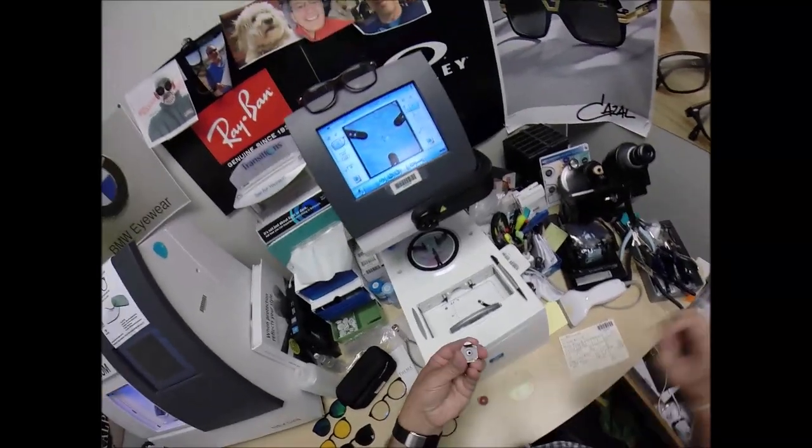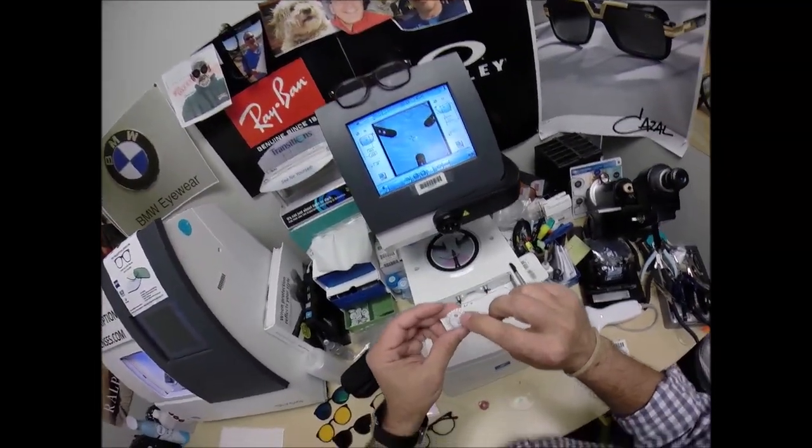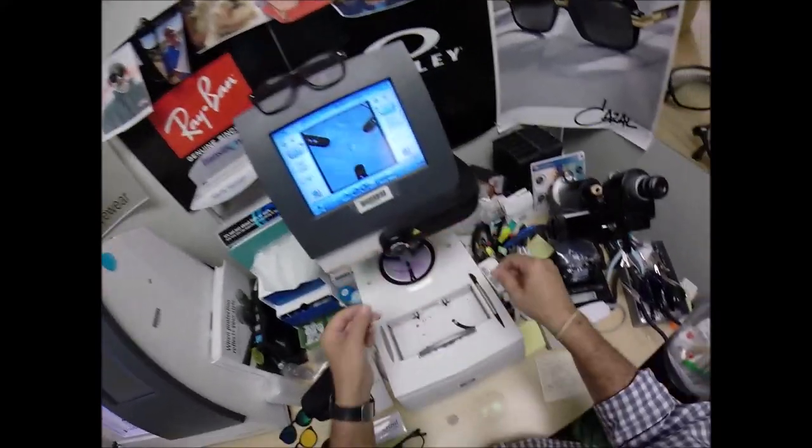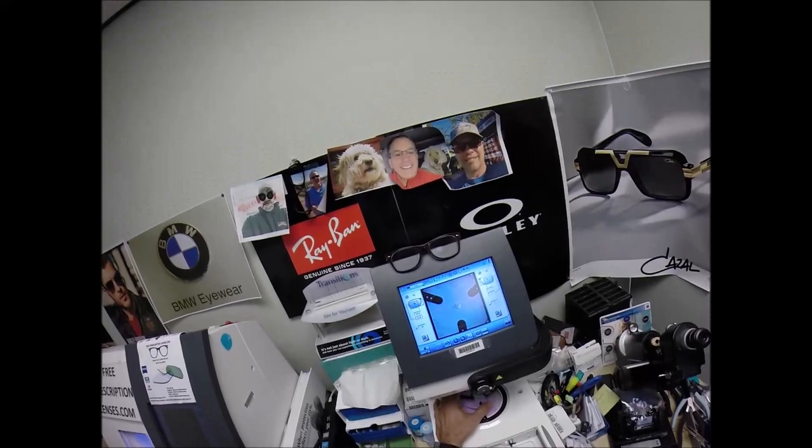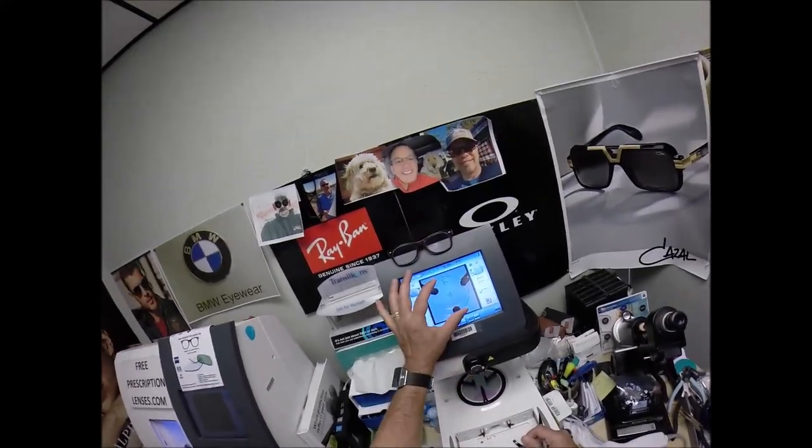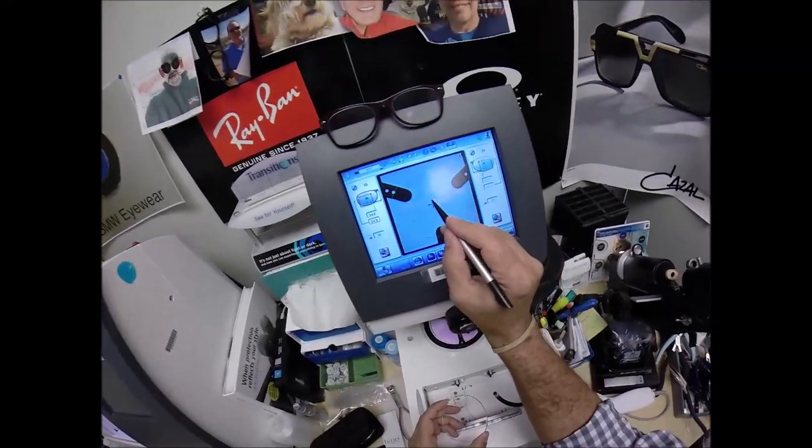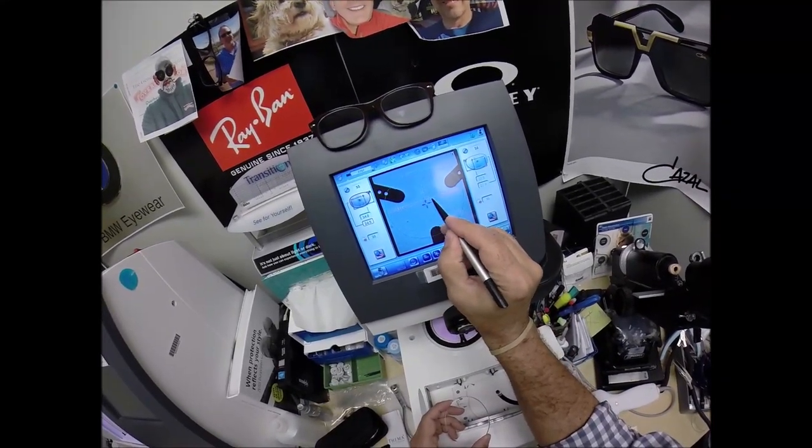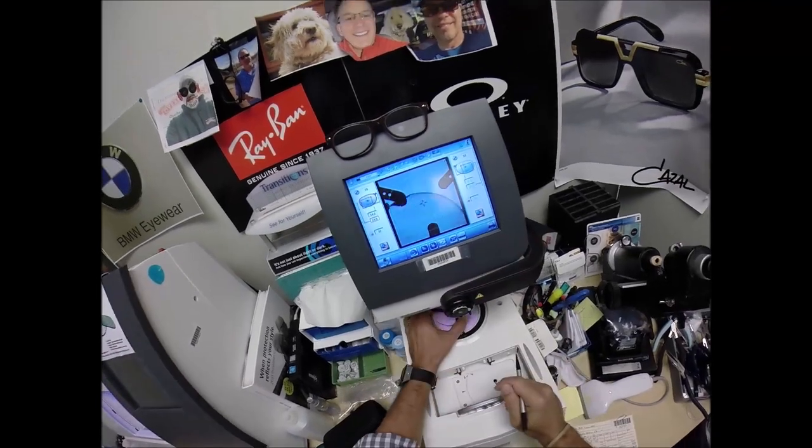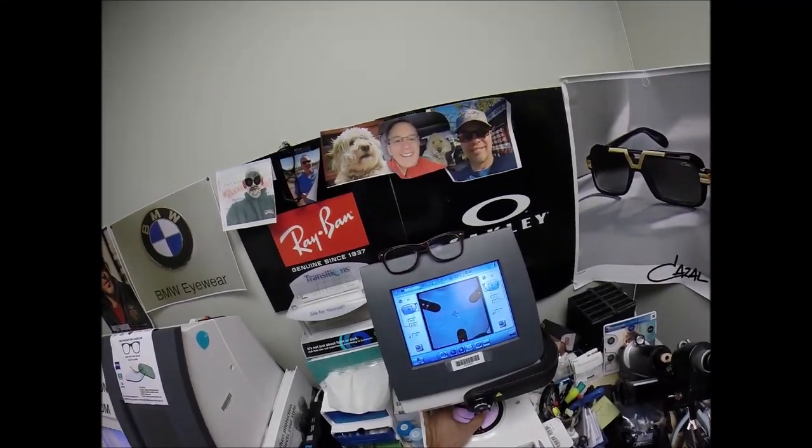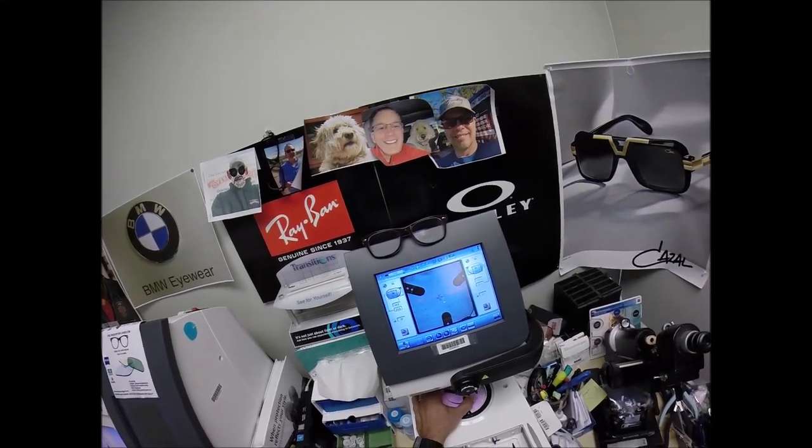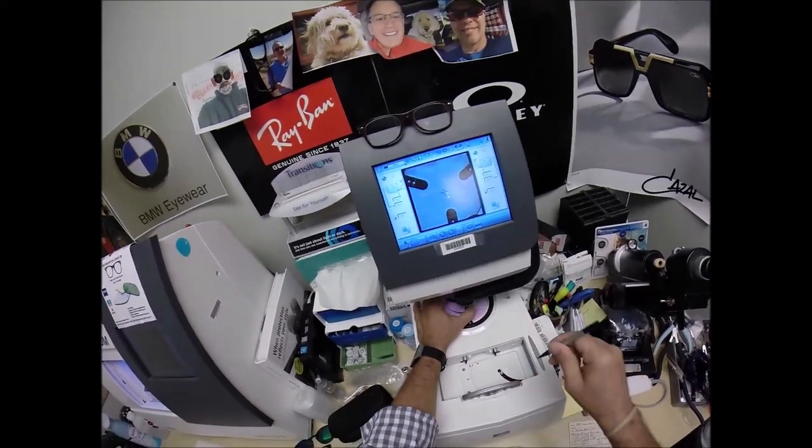I'm going to line up the magnet. Well, that silver button on the back is a magnet. It's going to do its job twice. It's going to attach itself to another magnet there in the chuck of the arm. And the reason why I put those three dots on there, it tells me that it's oriented in there just perfectly. The blue cross is the geometric center of your frame. I'm going to be looking at that orange cross here. Your eye is just above that and inset. So I'm going to get everything lined up there just like that. Kids, see what I'm doing? Kids, pay attention. See what I'm doing there? Getting it lined up like that. Hit that button. The arm comes down and places the block onto the right lens.